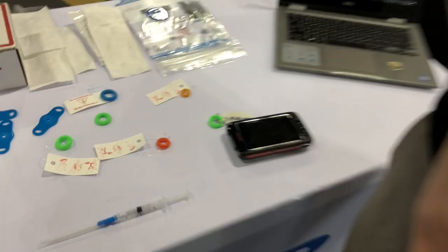They make the tourniquets that you know. They make this new thing for the finger — the unicot. One size fits all, just like the original, but one size. Doesn't need the tag to be visible. Just slides on. You can see it forces the blood out and cuts off circulation once in place. Handy-dandy.